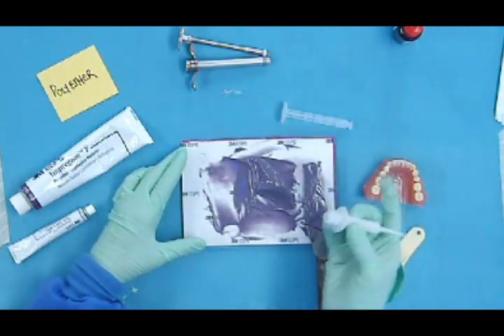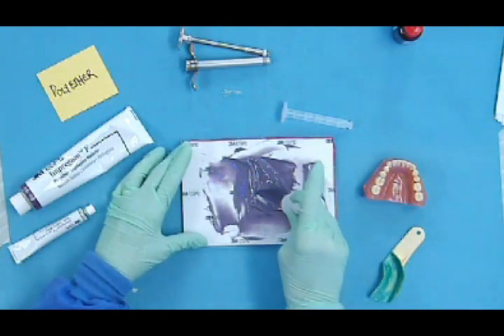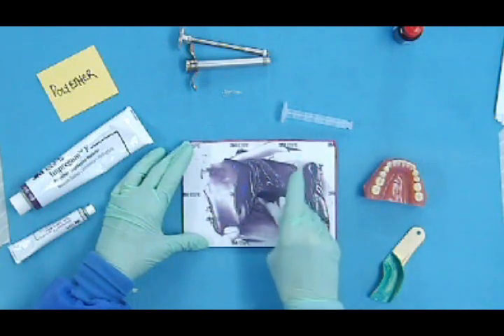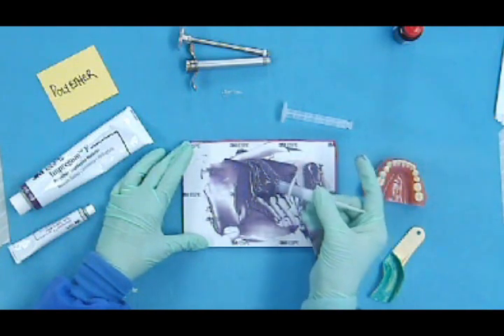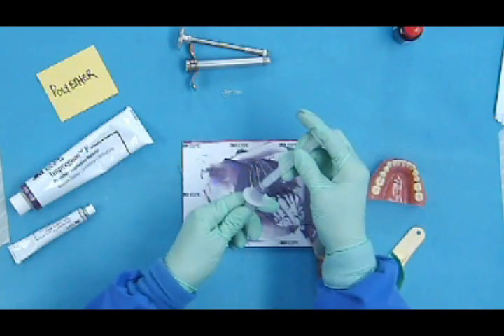In order to fill this syringe, I'm going to use this part of it, not the plunger, but the syringe part. And I'm just going to, this is called walking the material up into the syringe. So I would fill about this much of the syringe with the material and hand it to the doctor.